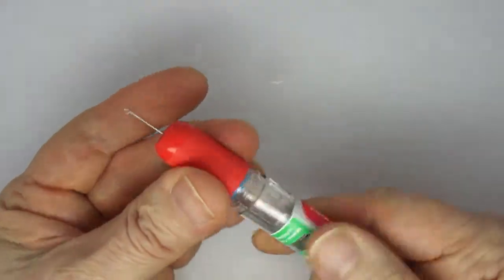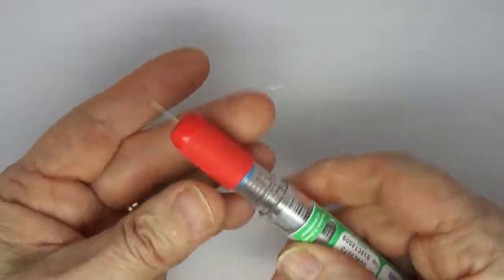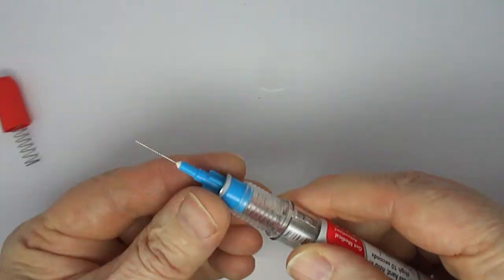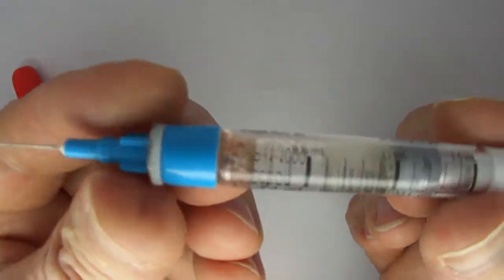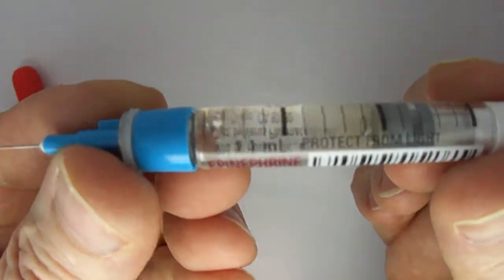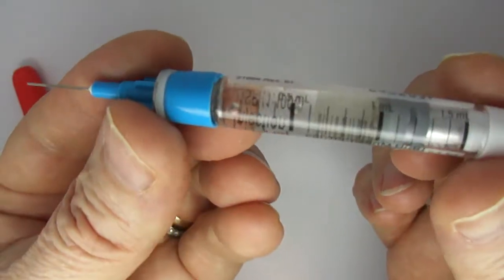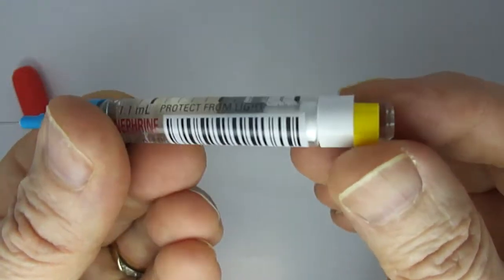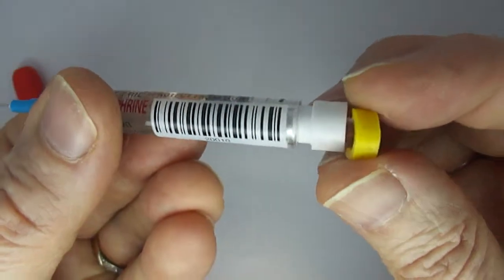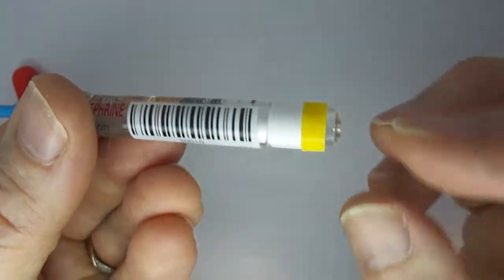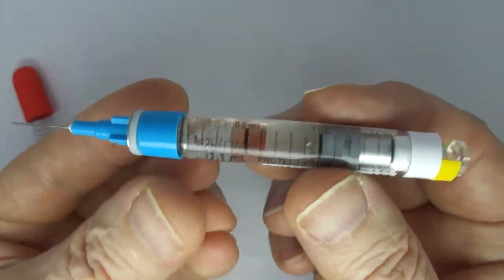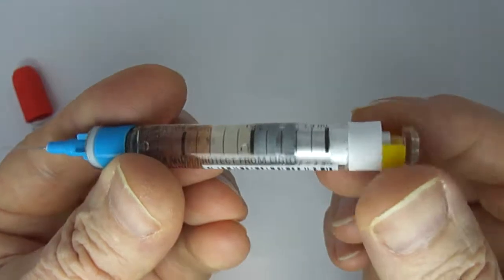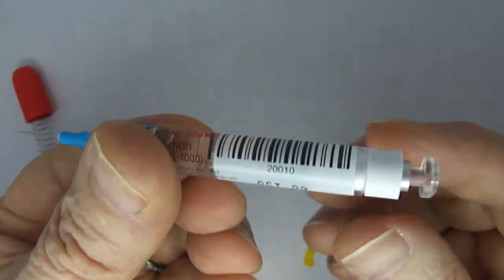And then you would simply unscrew the cap and there would be your remaining epinephrine and your potential additional doses. I believe this little orange piece is here because it blocked the spring from injecting as much epinephrine for the junior device as it does for the adult device. So we're going to remove that little piece.